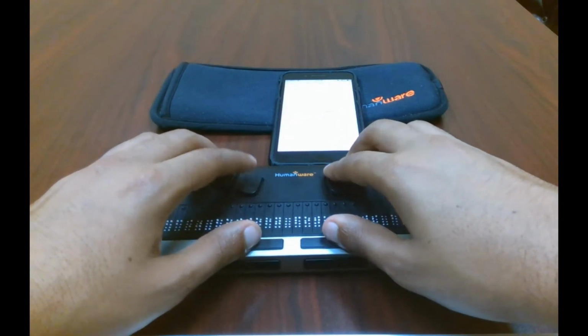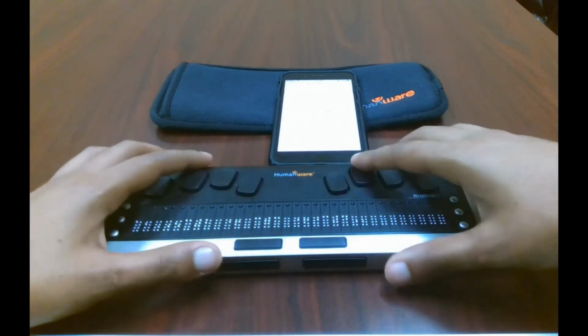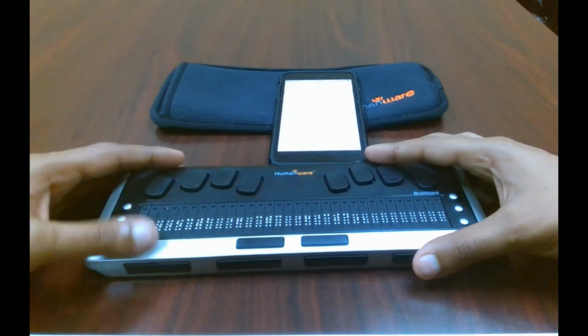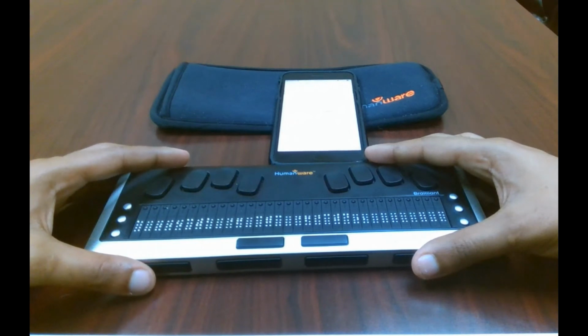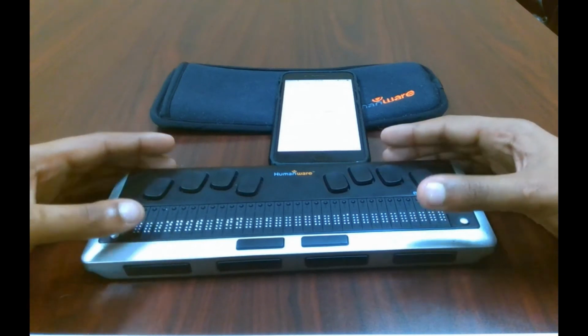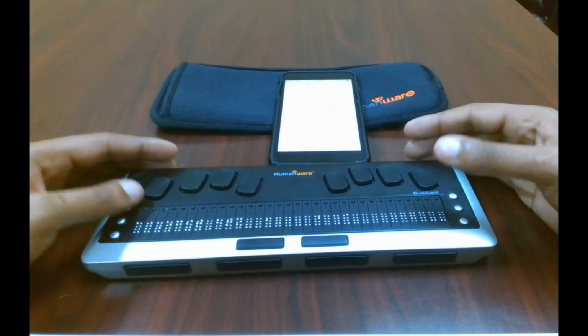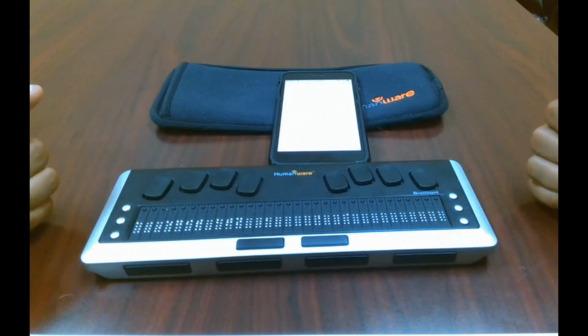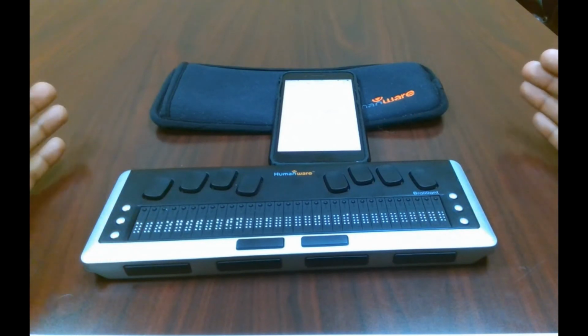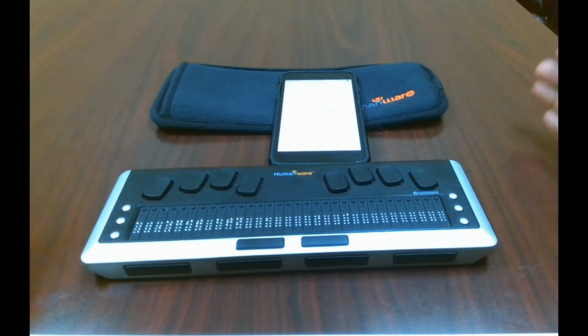And then to get out of that area, you just do the same thing. C2 plus C3 plus C4. And that C stands for chord. And I don't know if you heard earlier, but it says edit, Braille keys. You can always change the commands to where it's something that you want to do or you can remember. So these are just what's default, and you can always customize it. I know some people really like that as a choice. People like choices. So you can always change your Braille commands.